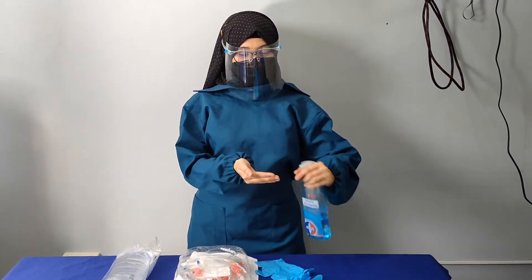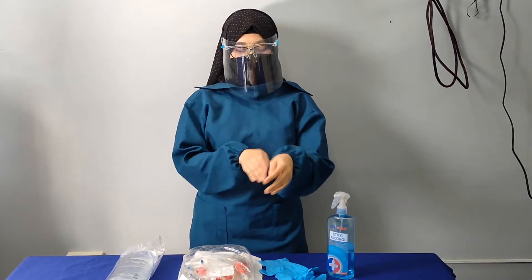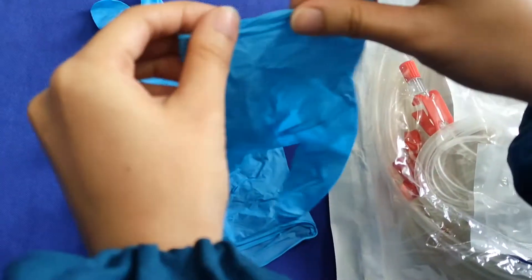First, do hand hygiene before doing any procedure or handling any patients. Next, put on your clean gloves.